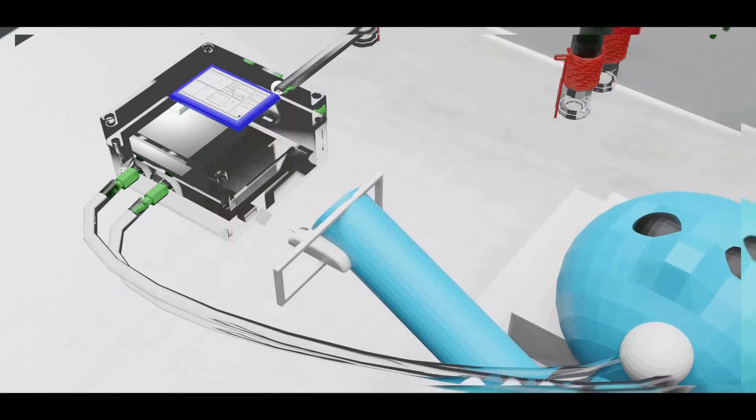Our self-sanitizing breathing apparatus uses UV light to destroy harmful material before and after entering and exiting the ventilator to make sure that contagious diseases are not spread from patient to patient.